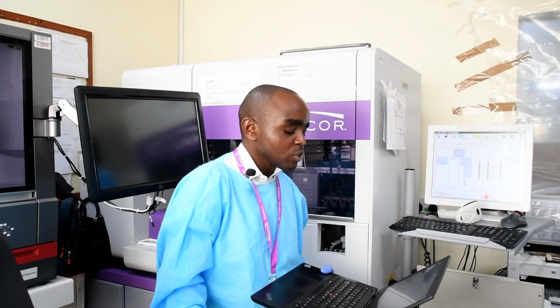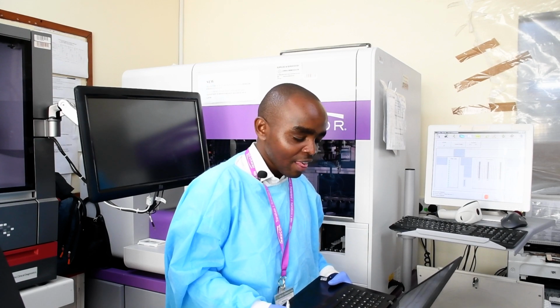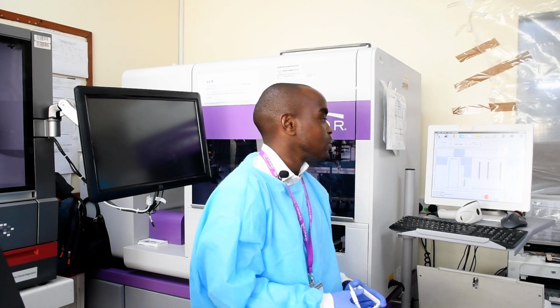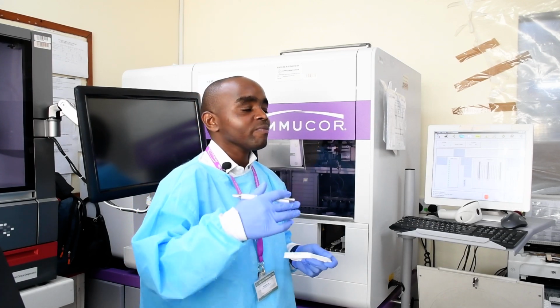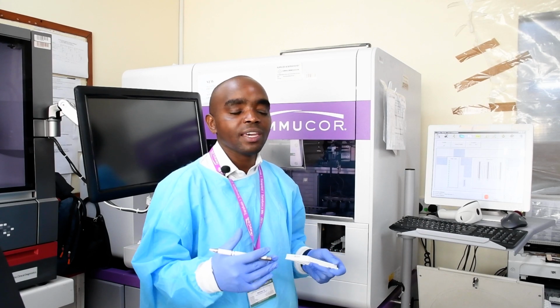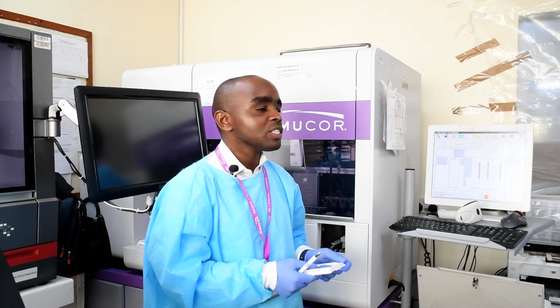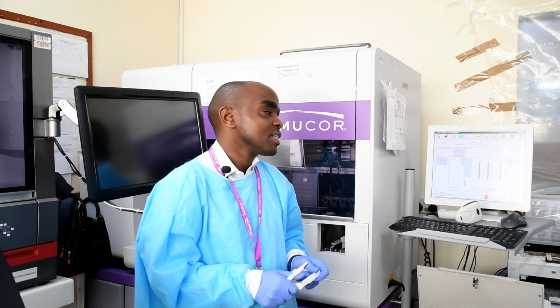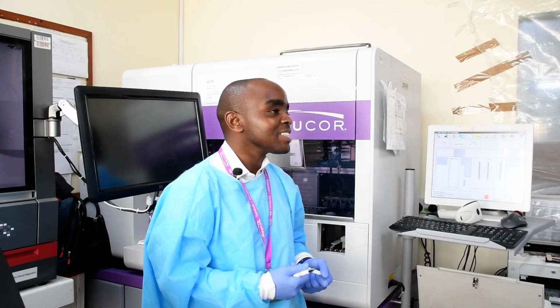And so the concept of compatibility encompasses more than the major technique, cross-matching. This is a more specialized procedure, especially for platelet transfusion, and could also be good for you. I know you are probably in the process of getting more sophisticated equipment for HLA for organ transplant, but this one could at least help in the meantime: the ABO titers. So unless we have a question, we can try to demonstrate it.